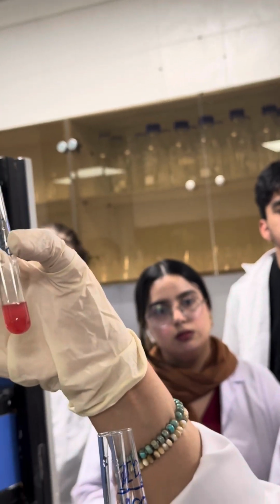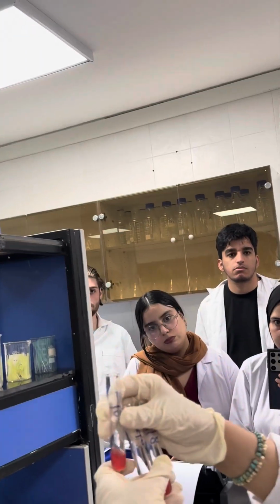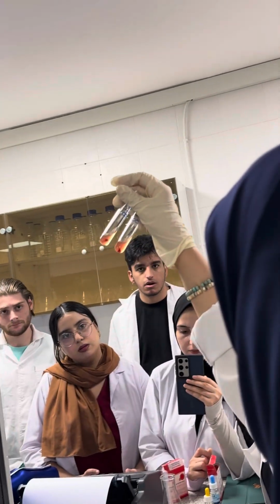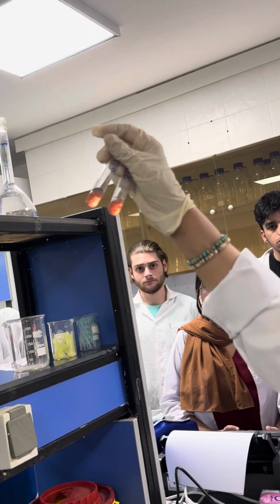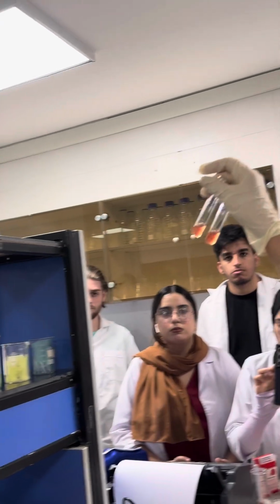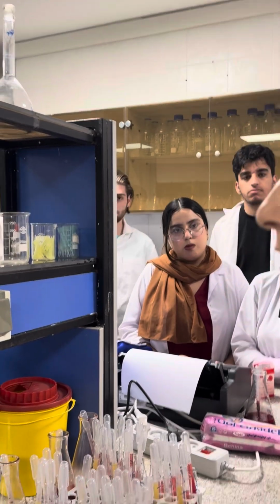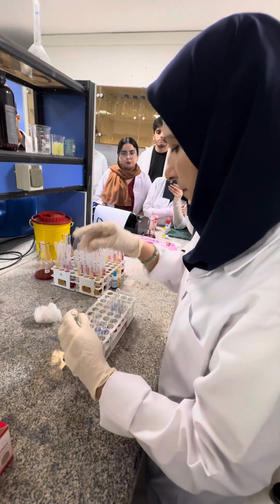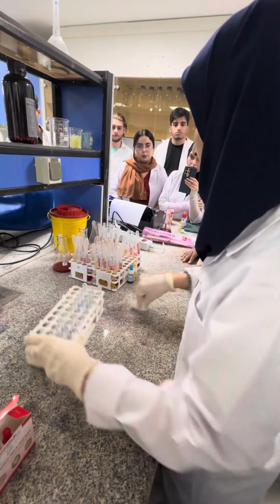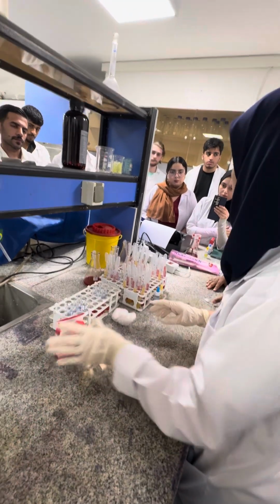It means that for IgM, they are compatible with each other. You don't have any contamination here. But for complete and incomplete IgG, they are incompatible because you have some reaction, because I see some agglutination particles. You must explain all of these. So are they compatible or incompatible? I mean the donor and recipient, they are incompatible. You must mention all of these notes in your paper sheet, and after that, just it. This is for cross-match and for ABO blood group.